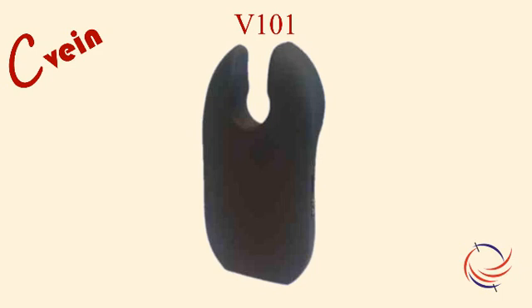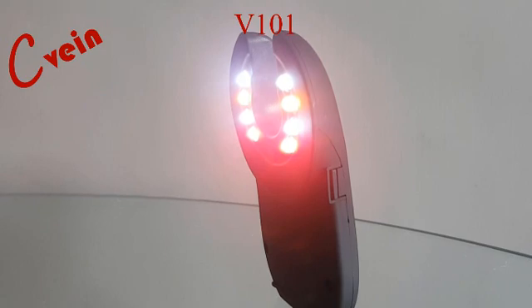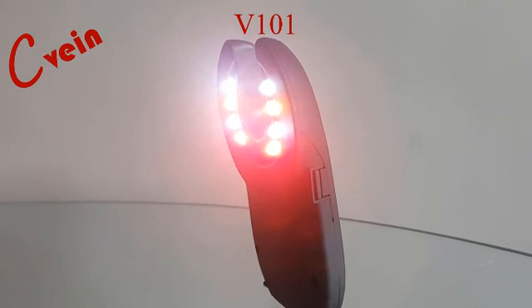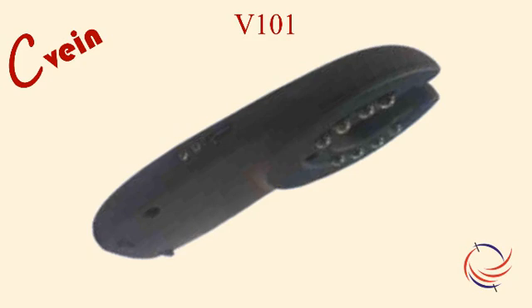Looking towards portability, V-101 is a rechargeable battery-operated device. It is a pocket-sized device that can be used to find difficult subcutaneous veins easily. This device is deployed with a nanopower technology, which does not need recharging for a period of more than two years when left unused. It has two levels of intensity control and an automatic charger control to prevent overcharging of the internal battery. It also has a five-minute auto-off in case it was left switched on unnoticed.